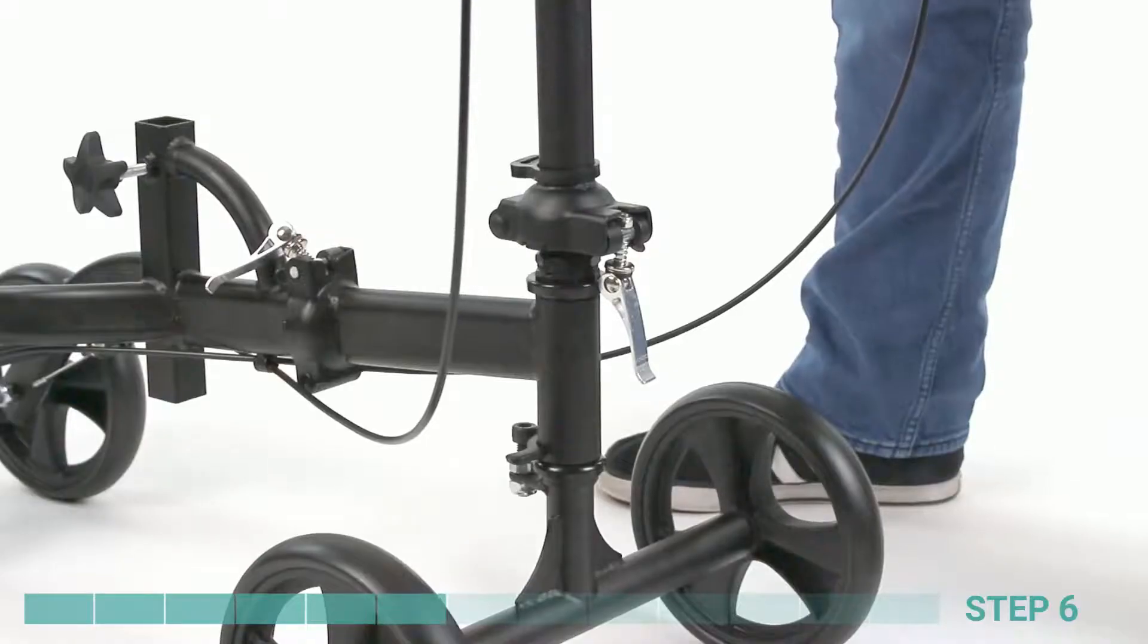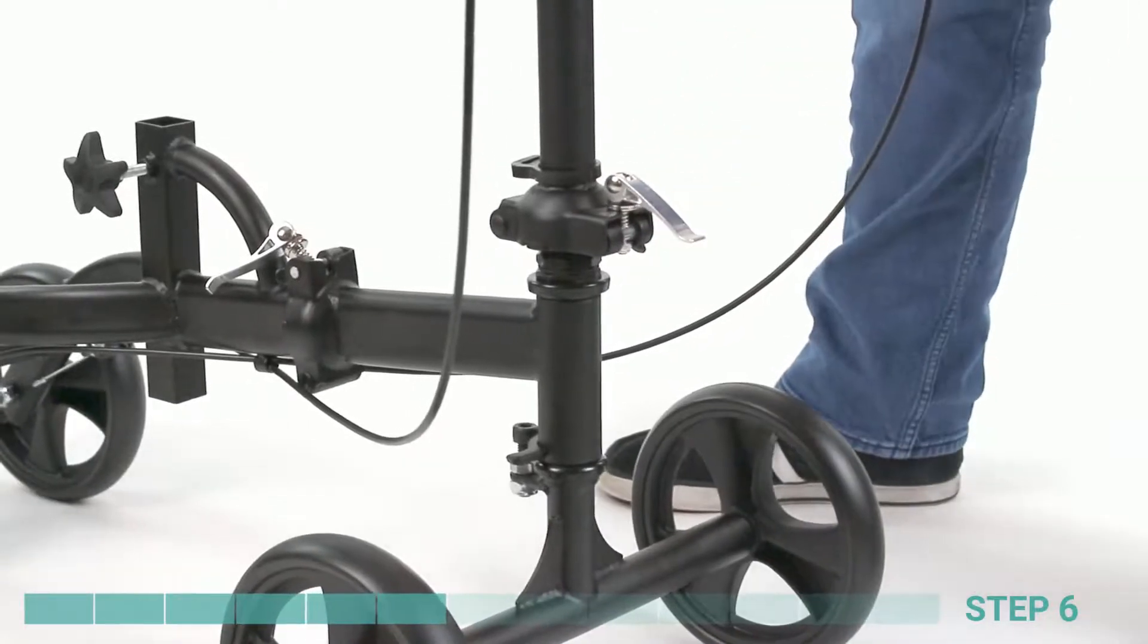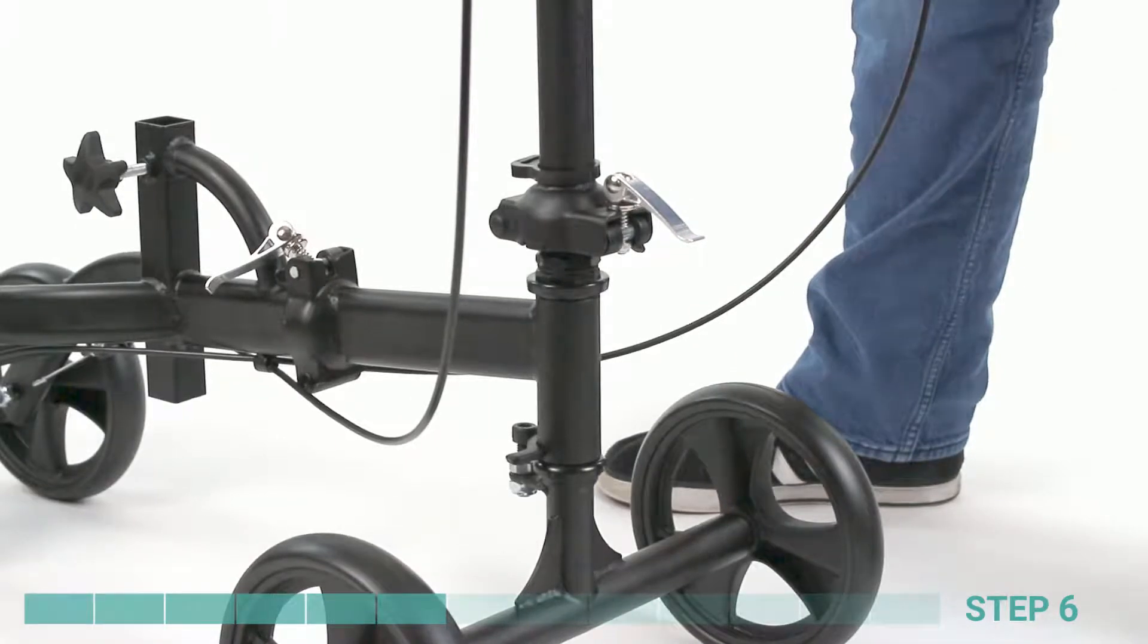Step 6. Lift the tension lever assembly at the base of the steering column into the groove at the front of the folding joint. Fold the tension handle down and forward, making sure the close text on top of the handle is facing up.